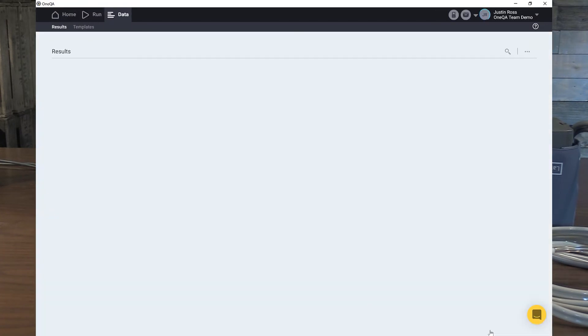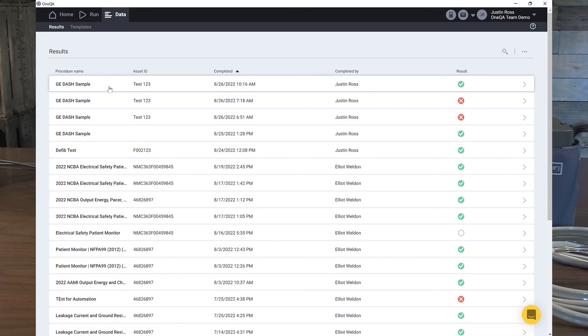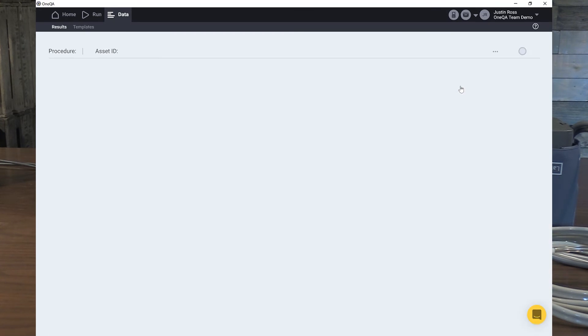From here, these are our results. We can make different forms of a report. We can do a modified report or we can do the all report with all the data. Here's our test. We just passed it. We can modify these reports and what data you want to come over to your PC.